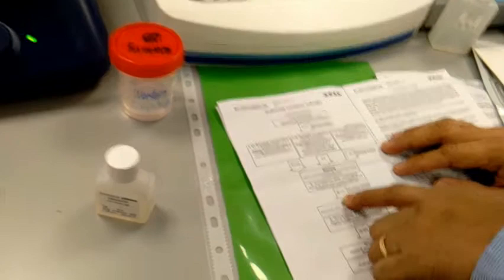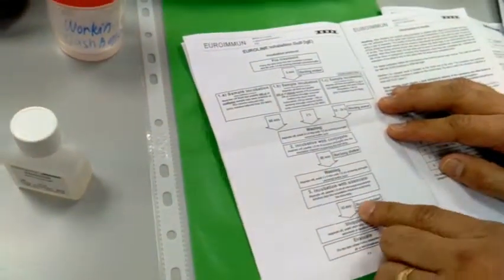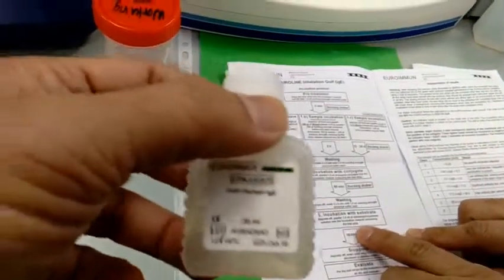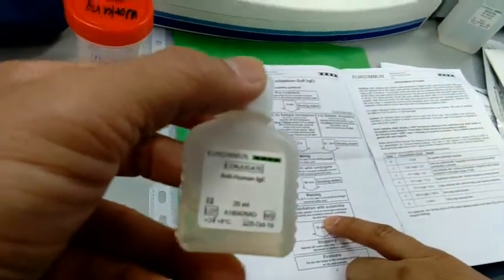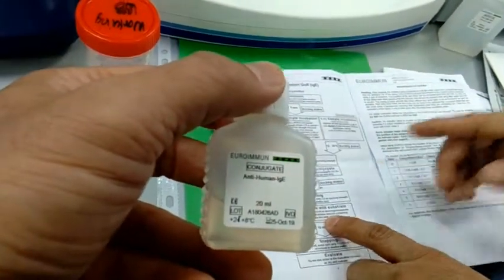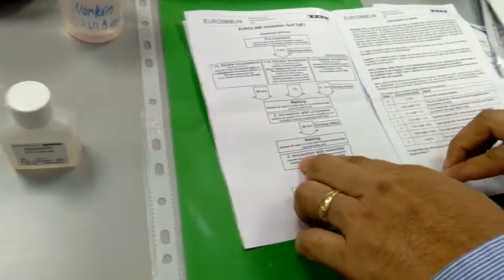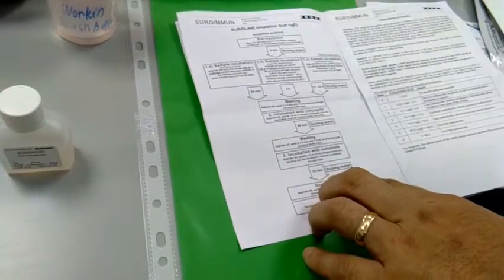And then we have to incubate again for 60 minutes. And then we have to wash again. And then incubation with substrate. Wash again. So 6 times in total. And then we have to put substrate.